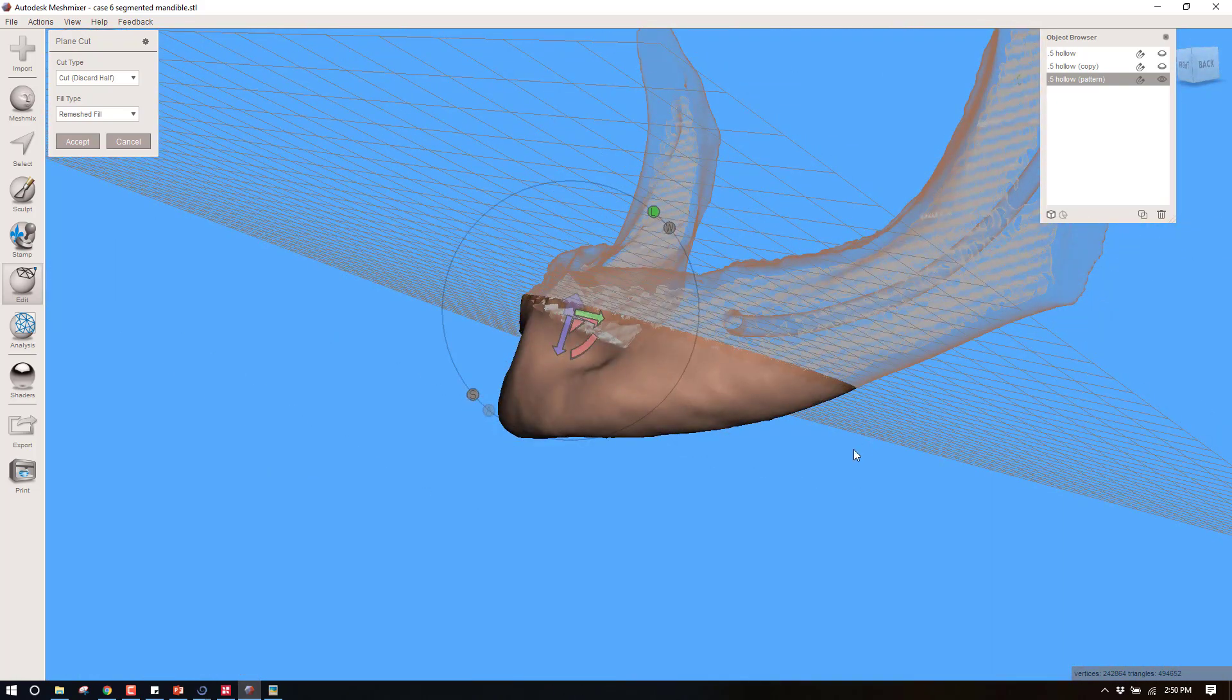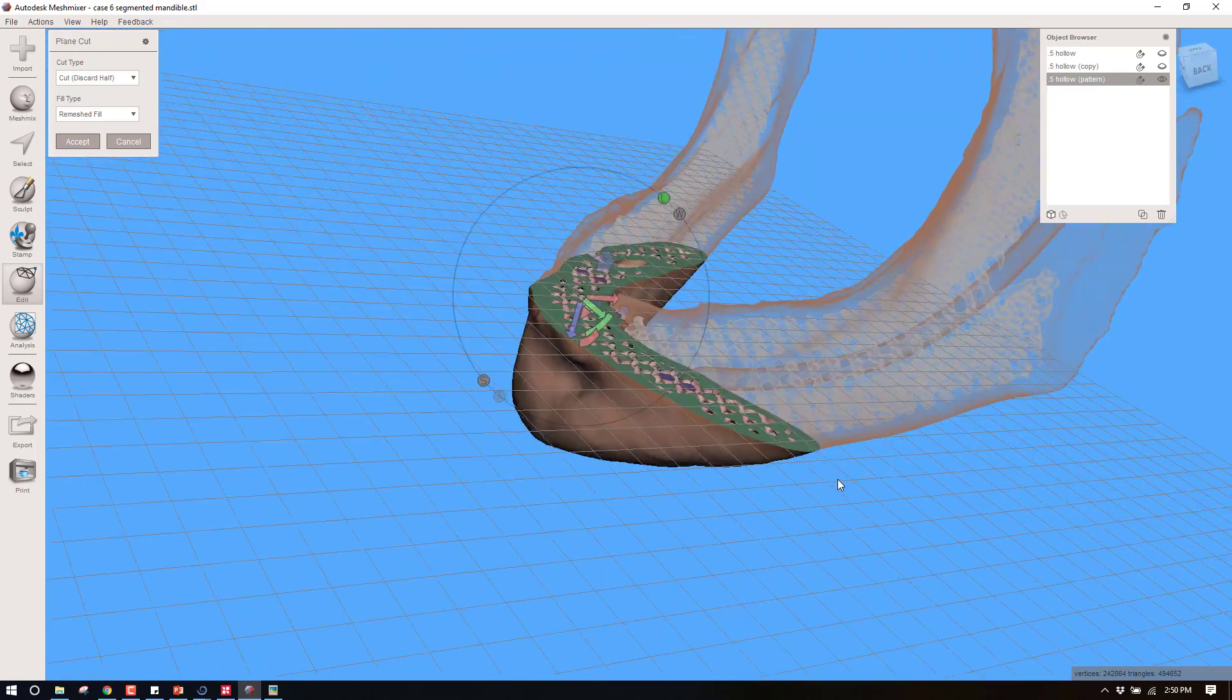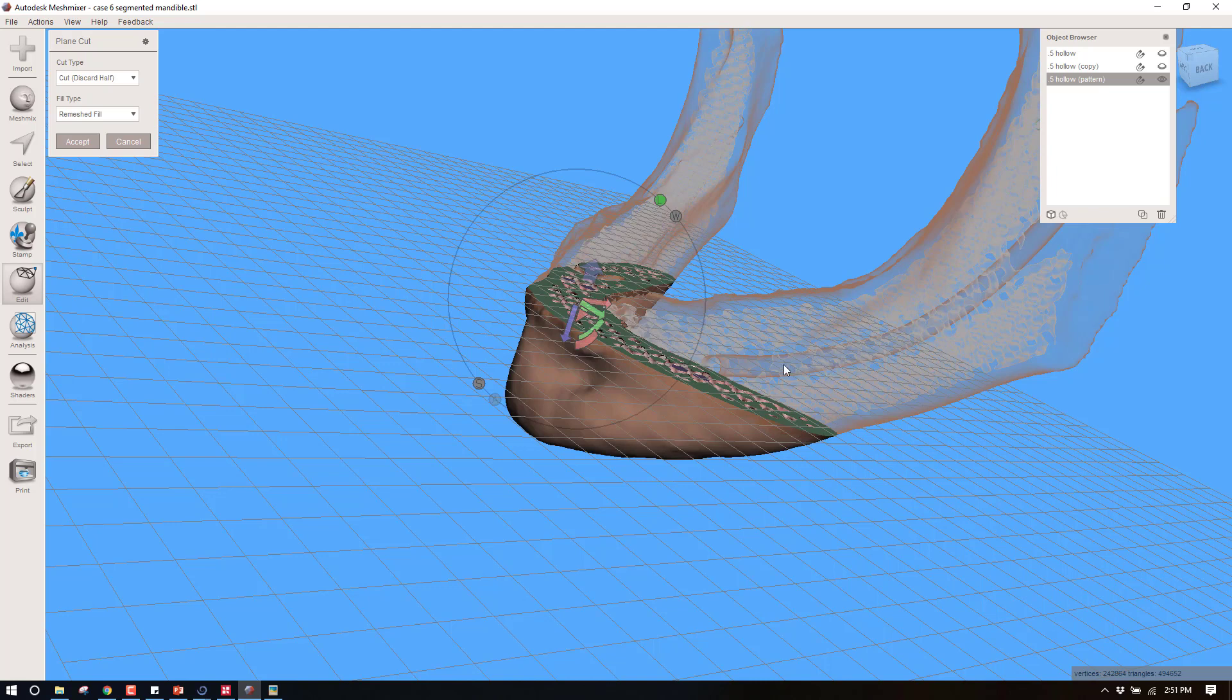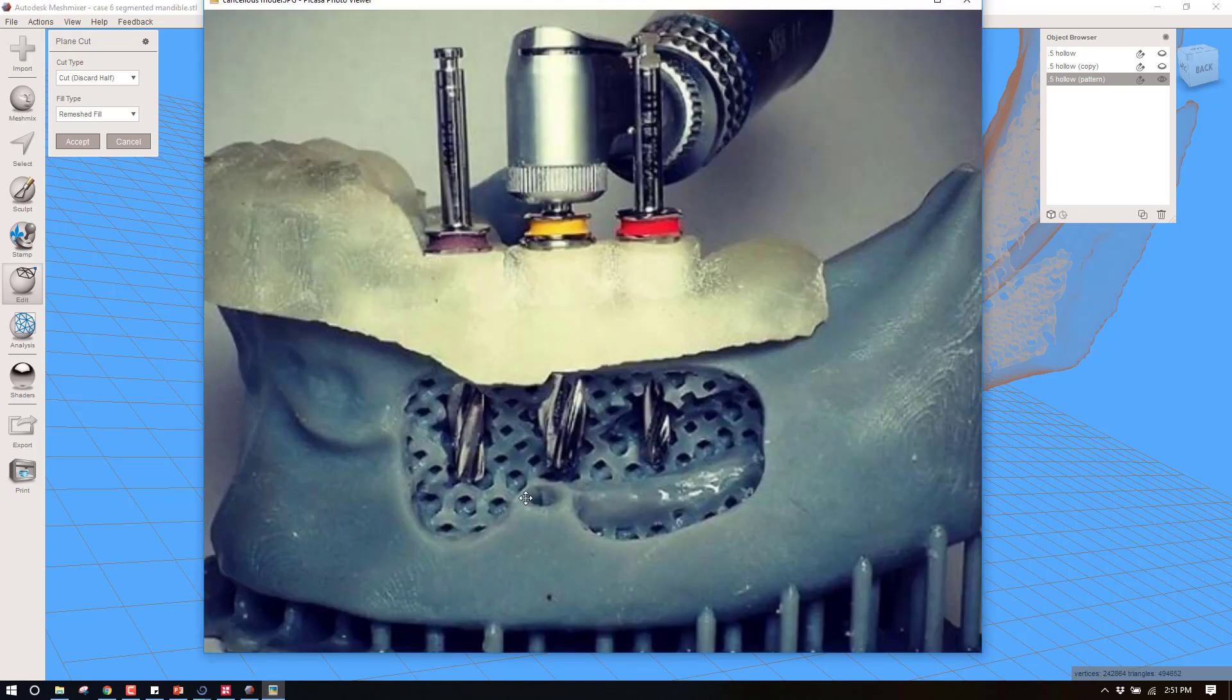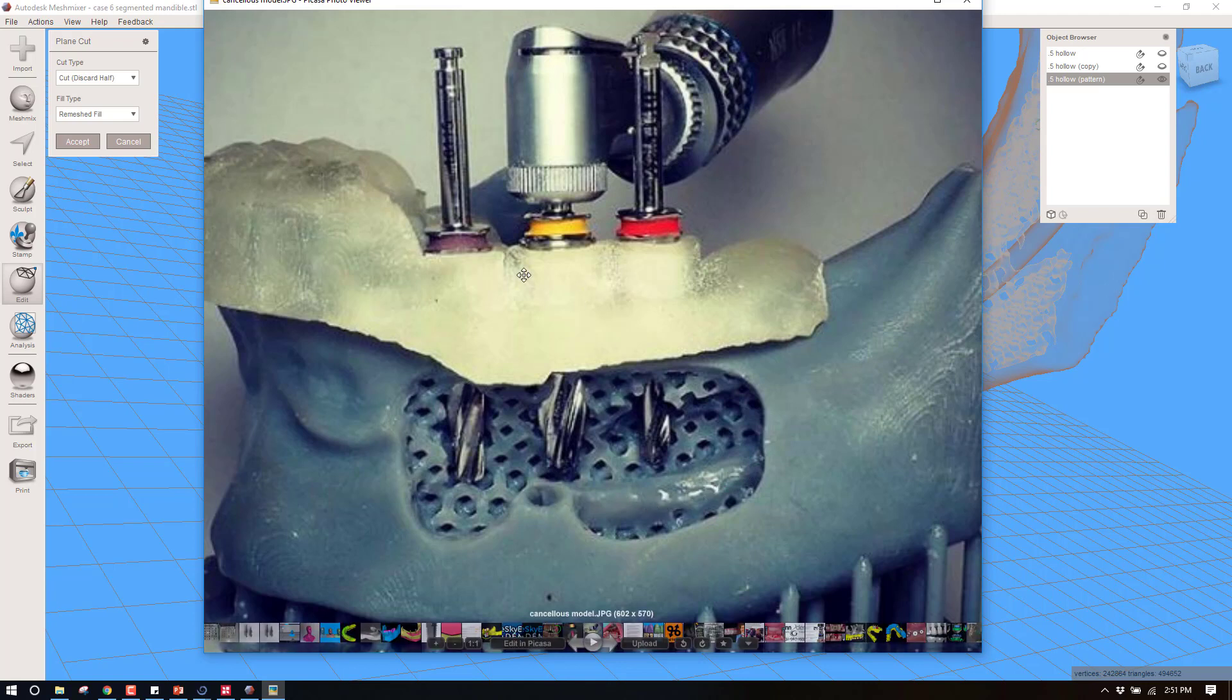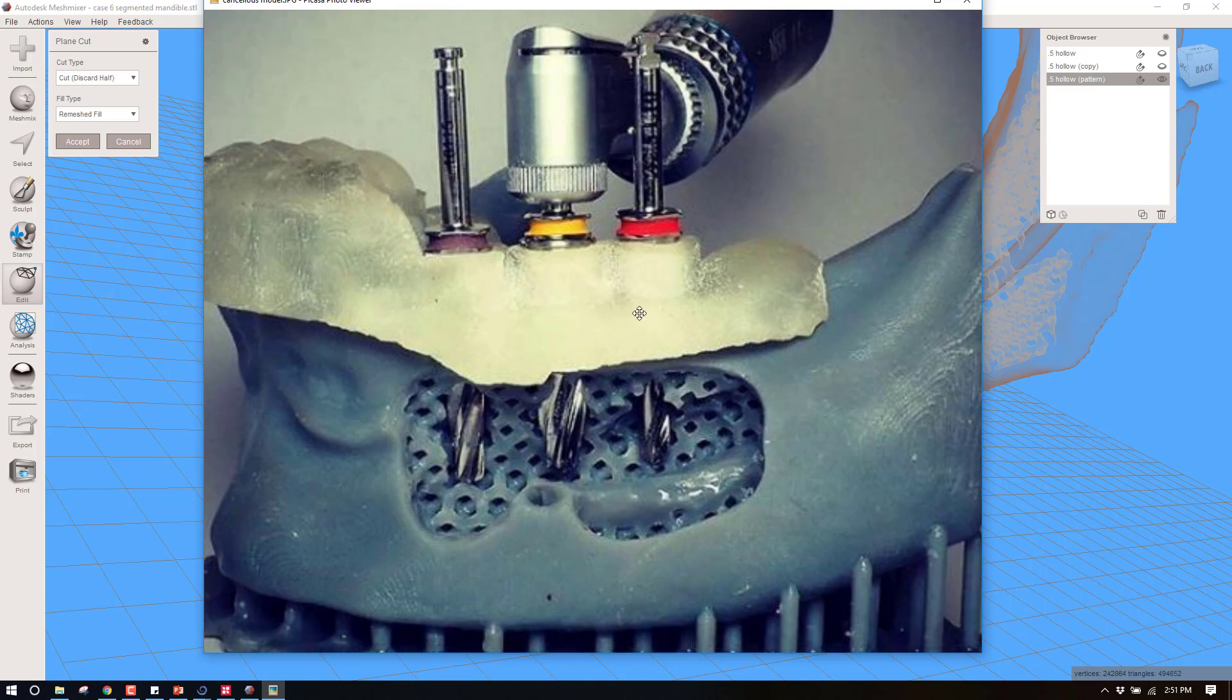Now remember this is one that I had previously subtracted out the nerve, so this one will be kind of cool in that it will have, if you cut a window into it, that's how you would get the effect that I generated right here, which is this tube of the nerve. Then I just cut out a window and I'm just using this for sake of demonstrating the Blue Sky Bio fully guided keyless kit.